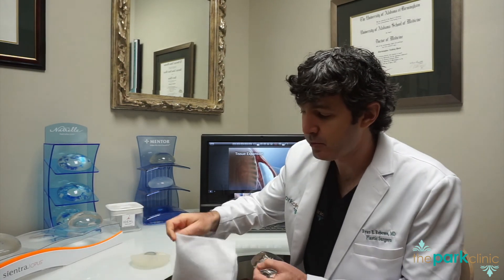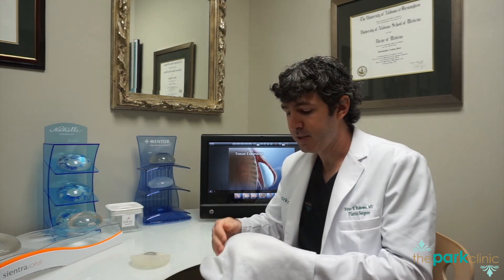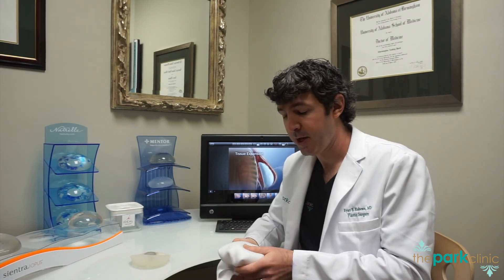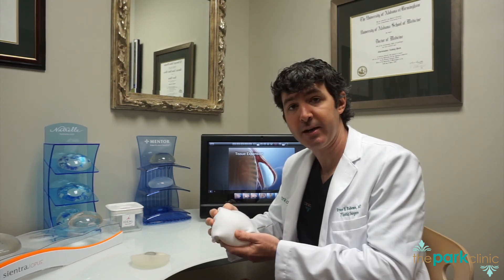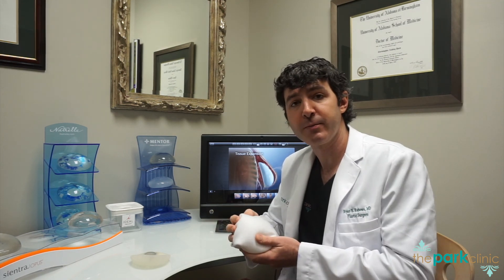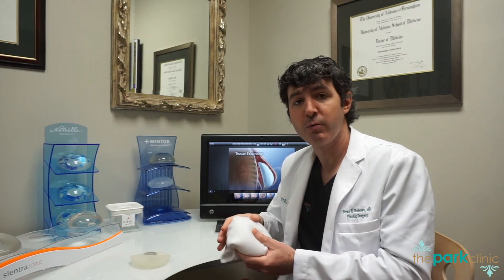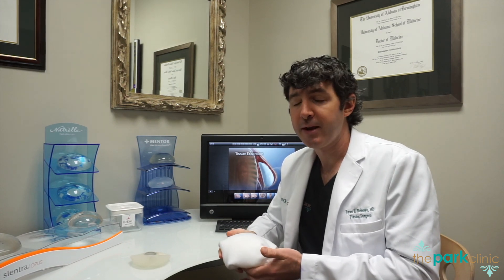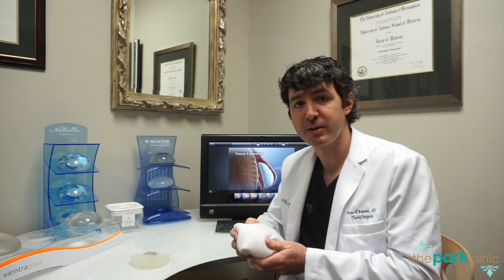You can see how we would utilize a matrix shaped very much like this piece of cloth to wrap the expander or implant, and then place it inside the breast pocket near the chest wall — this becomes your reconstruction above the muscle. This is my preferred way to do reconstruction when appropriate; I do about 90% of my reconstructions above the muscle. But every surgeon will have their own reasons for performing either above-the-muscle or below-the-muscle reconstruction.